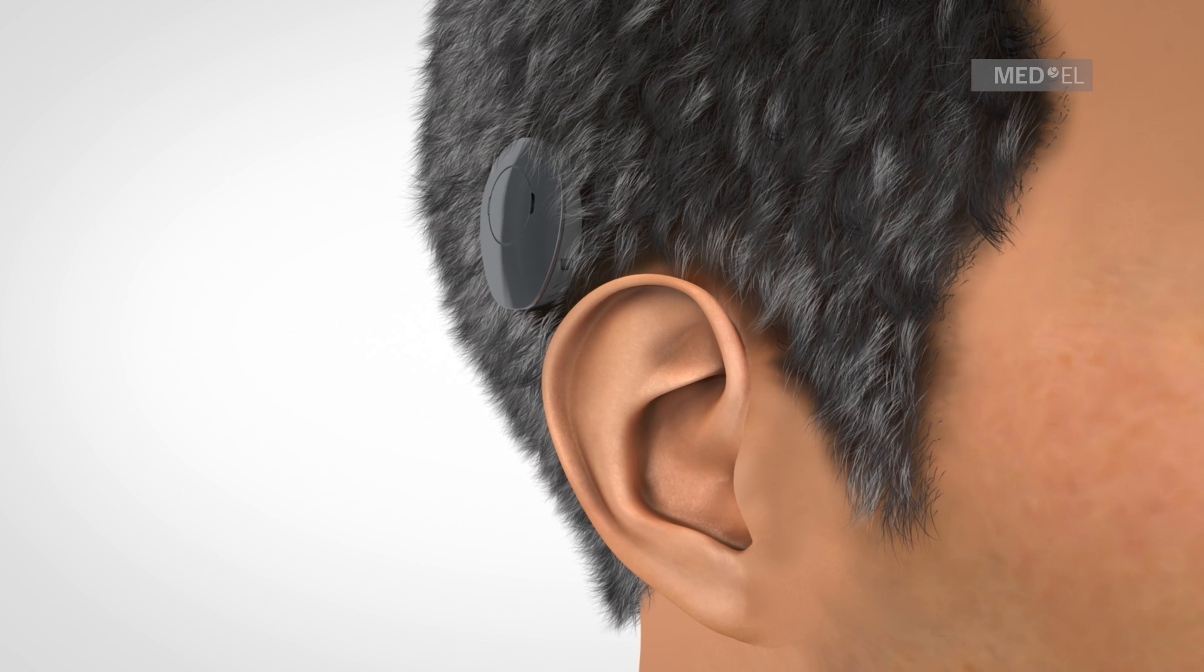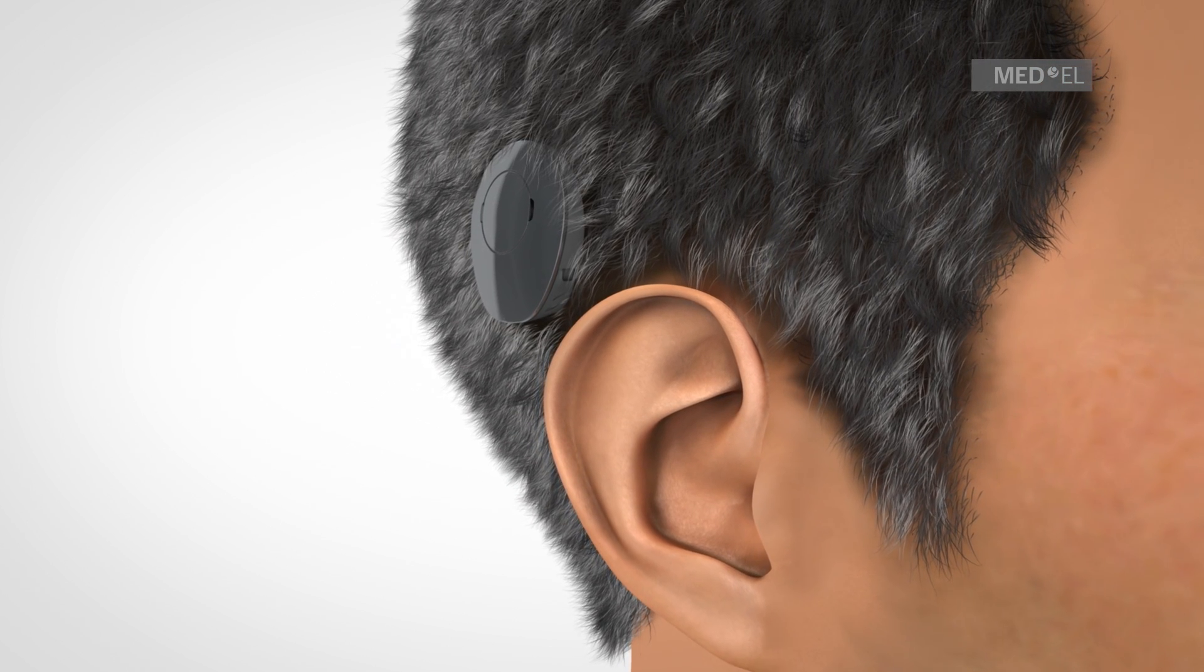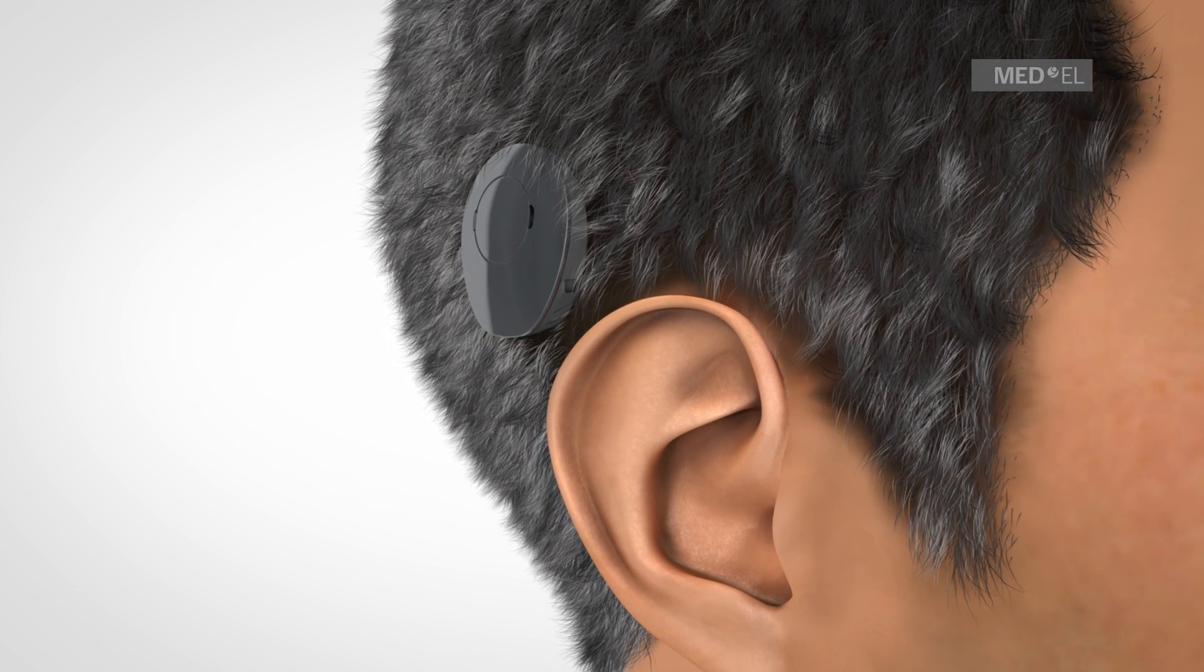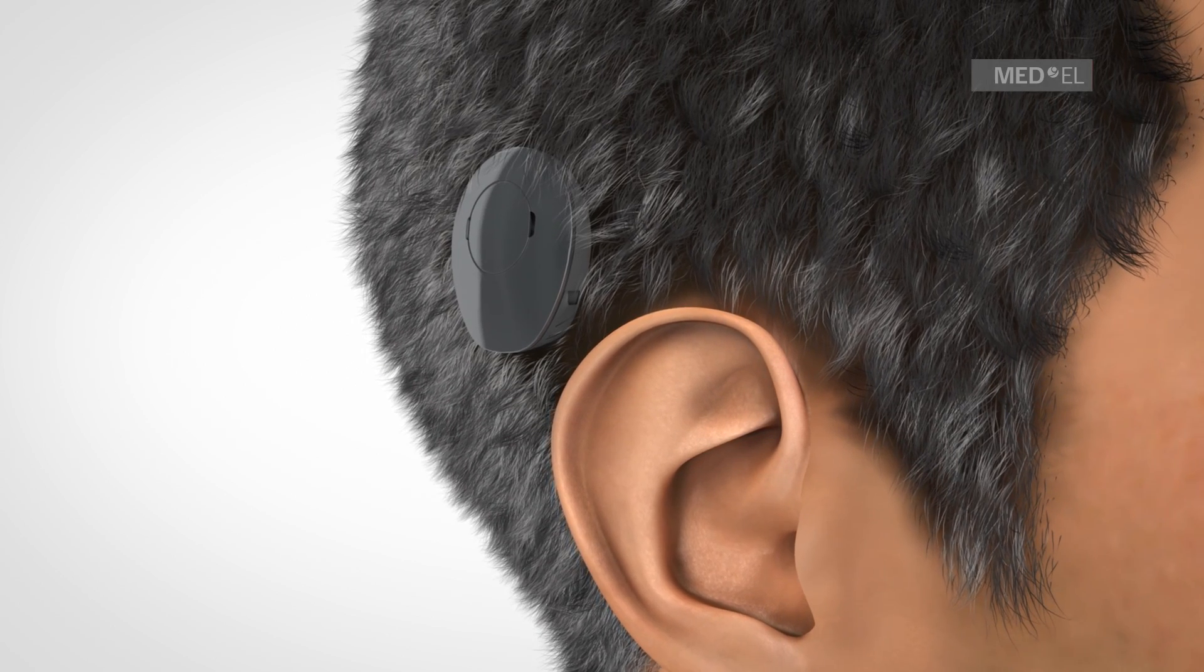Six to eight weeks after surgery, patients can be fitted with the audio processor and their system is activated.